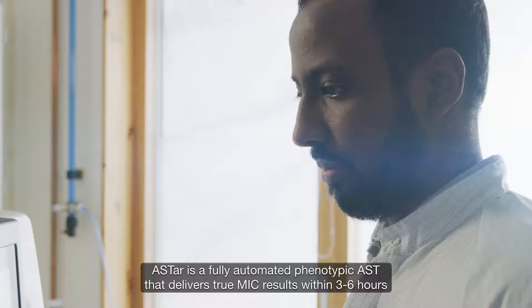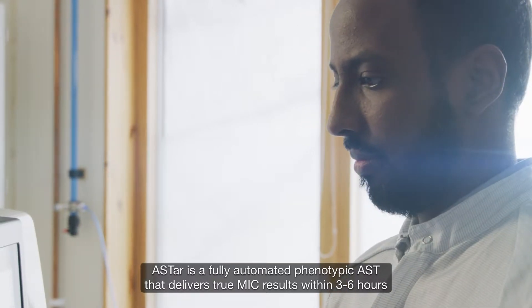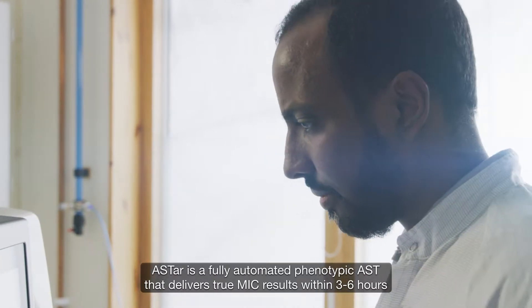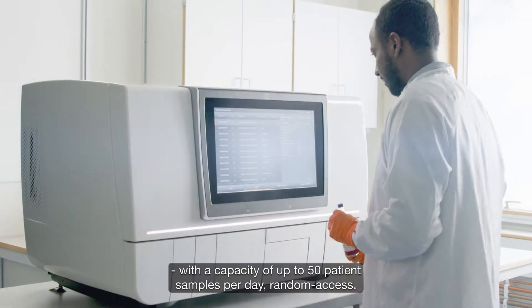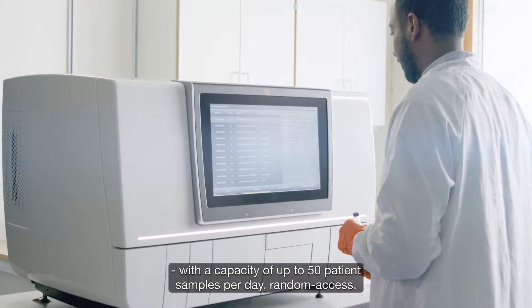ASTAR is a fully automated phenotypic AST that delivers true MIC results within 3 to 6 hours, with a capacity of up to 50 patient samples per day random access.